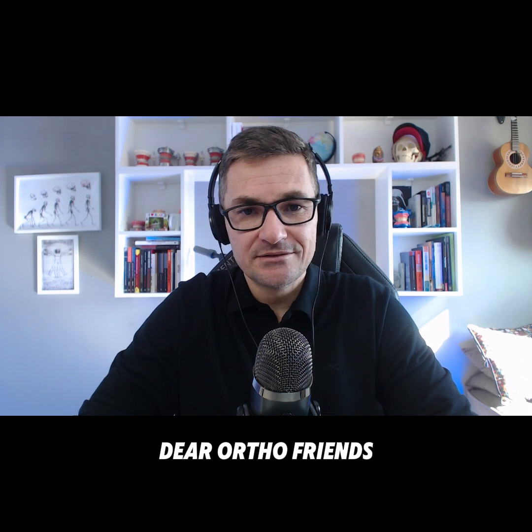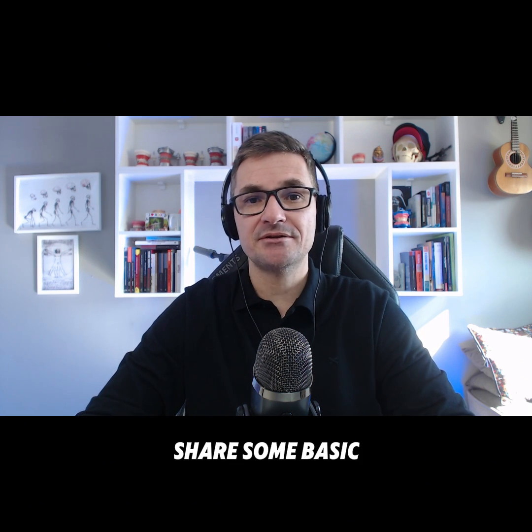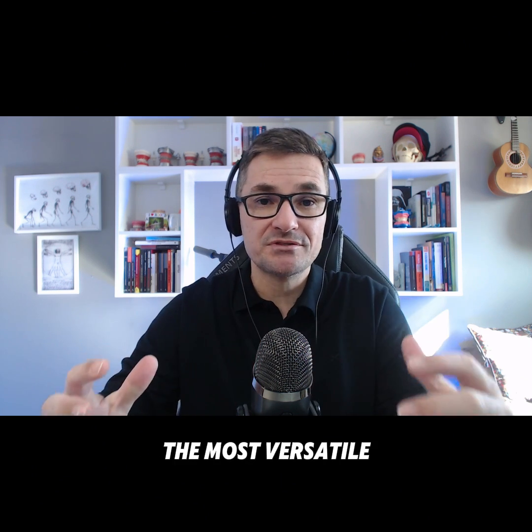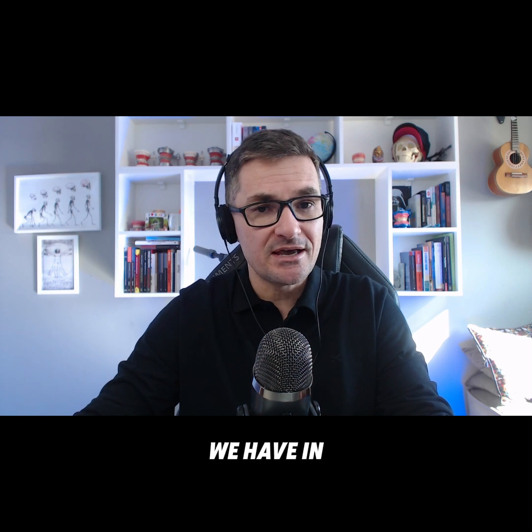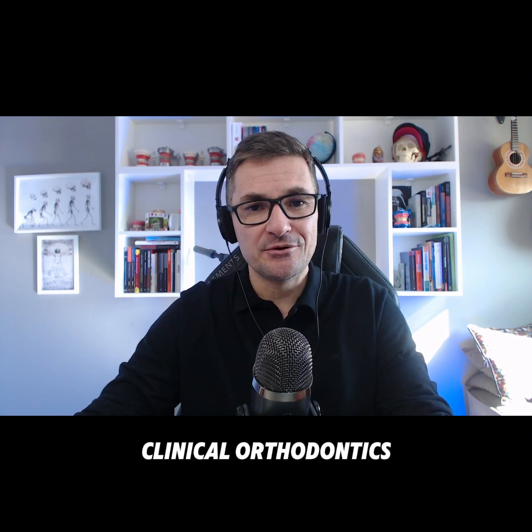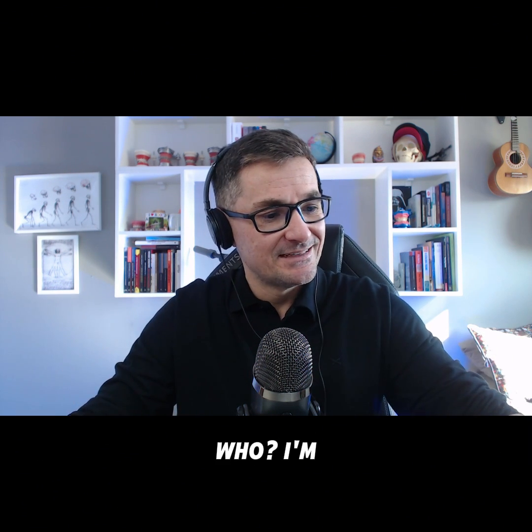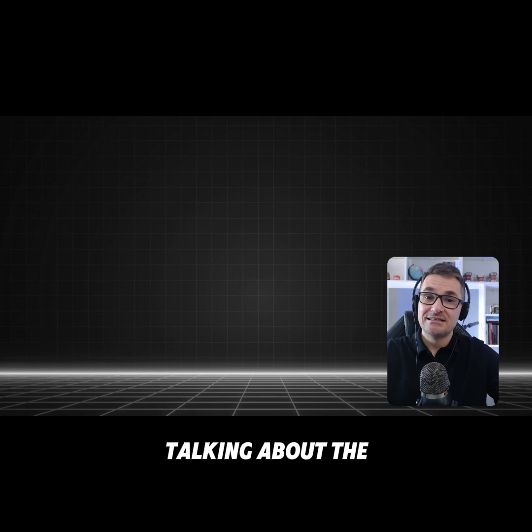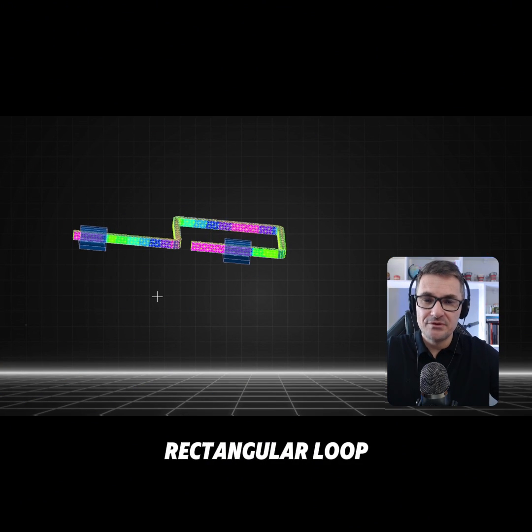Dear ortho friends, today I'd like to share some basic knowledge about one of the most versatile tools we have in clinical orthodontics. I'm talking about the rectangular loop.